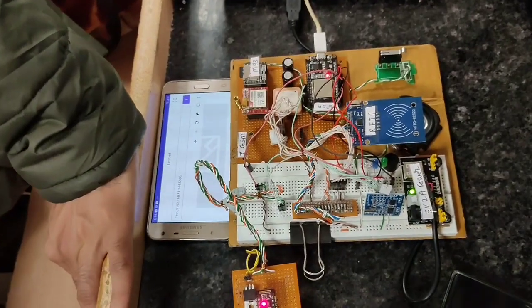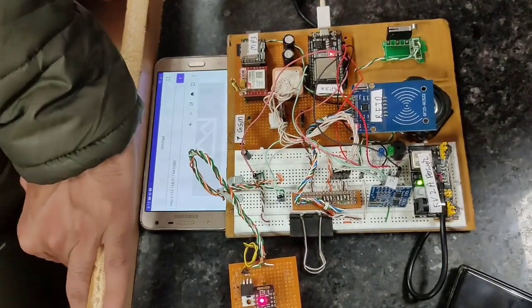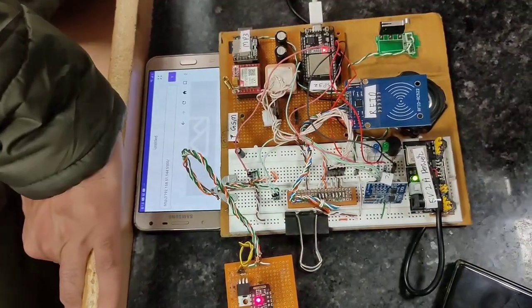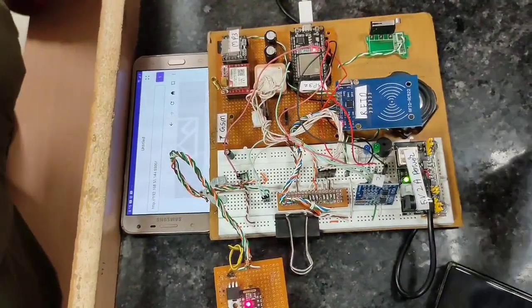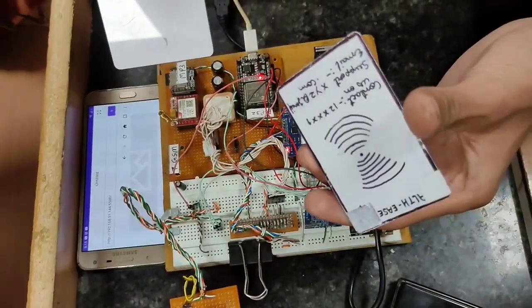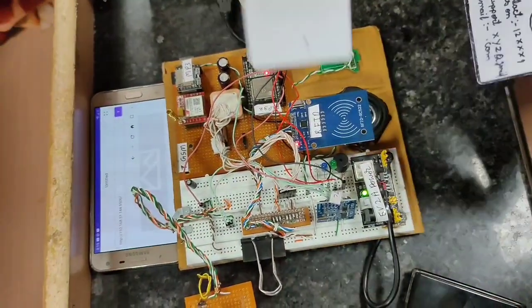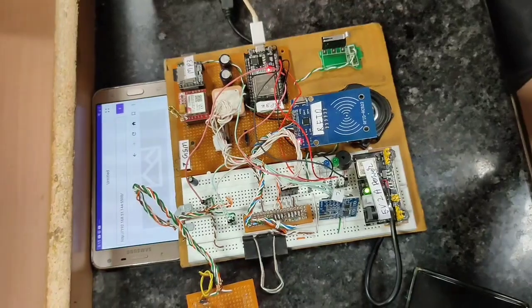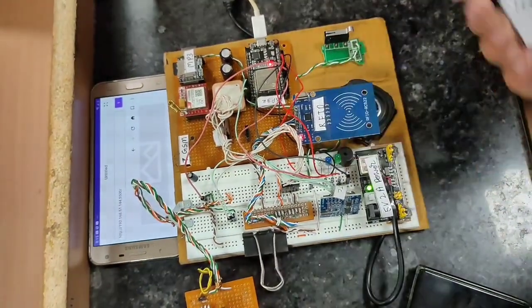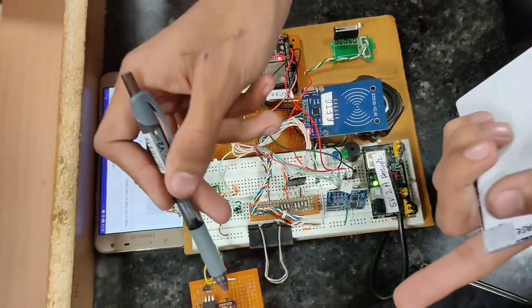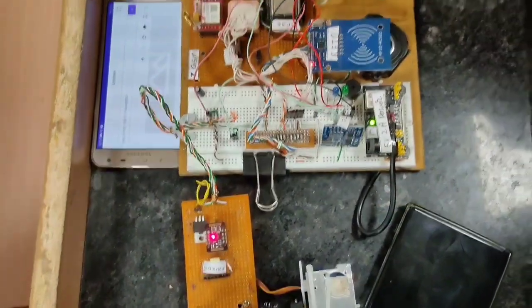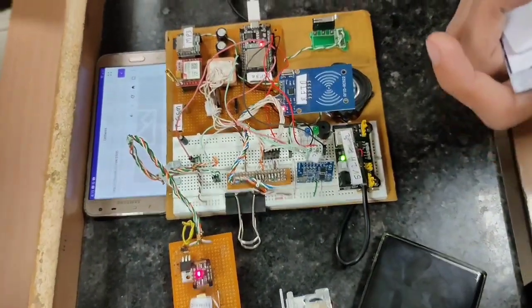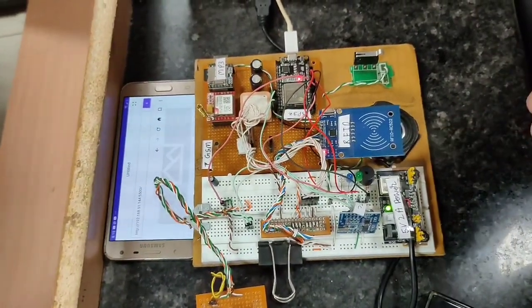That was the case for a new user. Now let's suppose there's a registered user who frequently uses our service. We'll assign these types of RFID cards to the user. The user will tap the card and his data will be fetched automatically because the card carries his data. He only needs to place his finger on the sensor and everything will be sent to his mobile. The registered user will have cloud storage, and his data will be synced across devices on the backend.